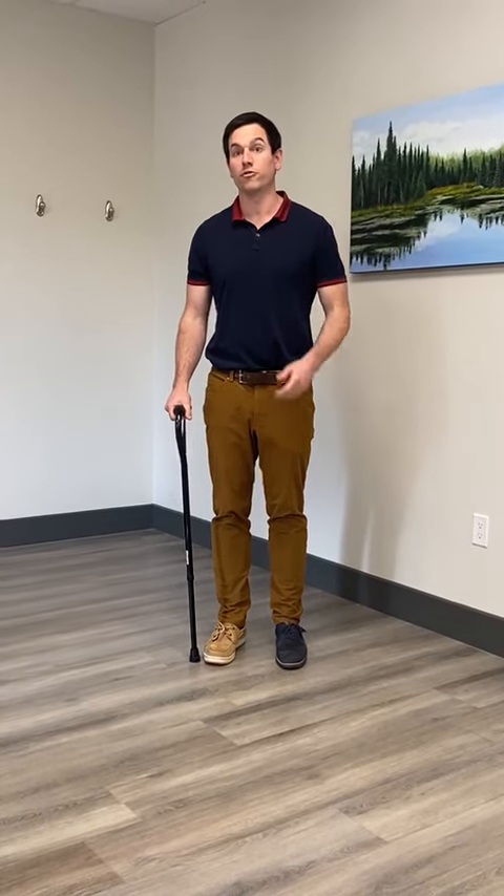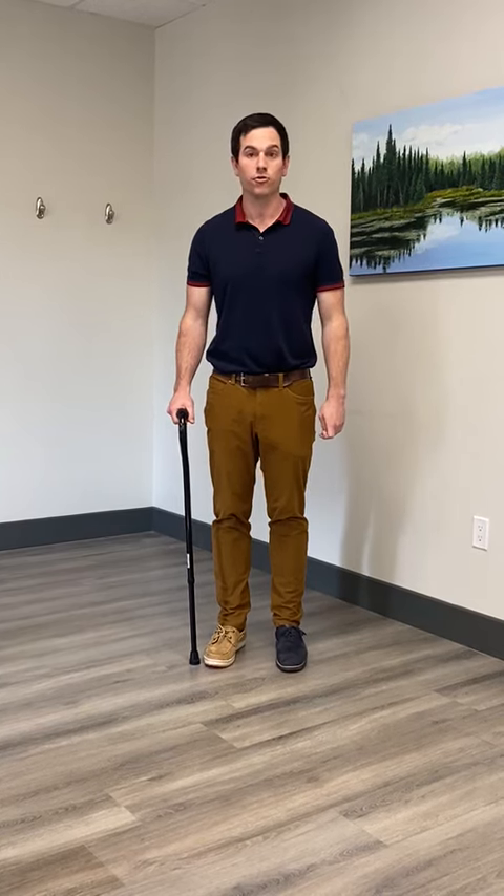To start with walking with a cane, it is important to make sure you have adequate balance. You may want to work with your physiotherapist, doctor, or surgeon to ensure that you won't have a fall when moving from a walker, or from not walking at all, to moving with a cane — and to make sure you reduce any chance of further injuries.